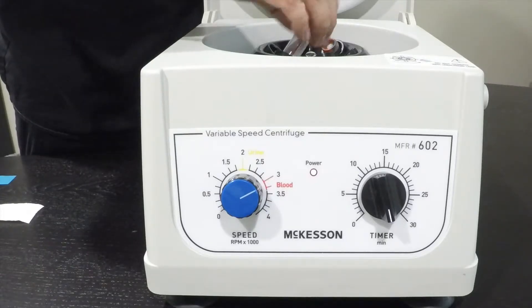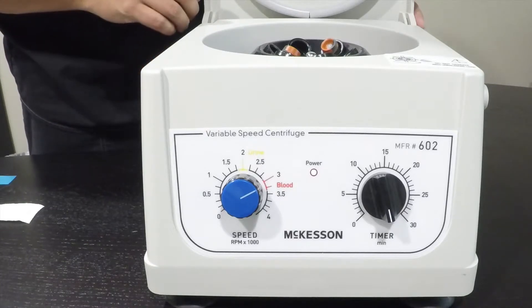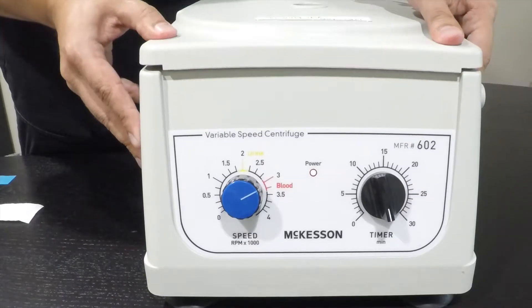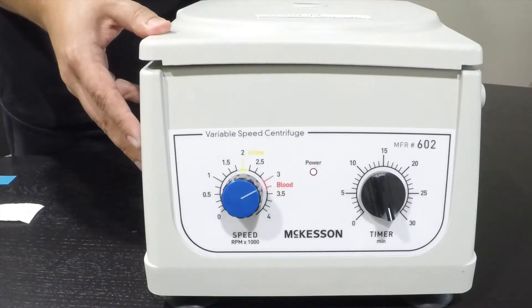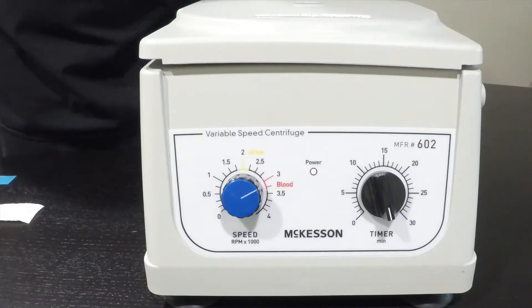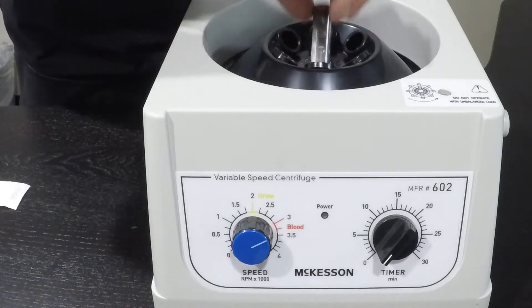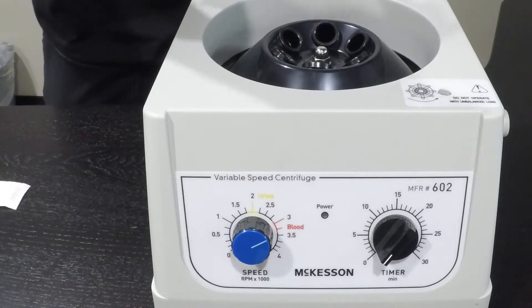Now that the blood has clotted, the MA will place the tiger tops into the centrifuge. Make sure the centrifuge is closed and secure and it will spin for 20 minutes. Wait for the centrifuge to come to a complete stop, then pull out the tiger tops.